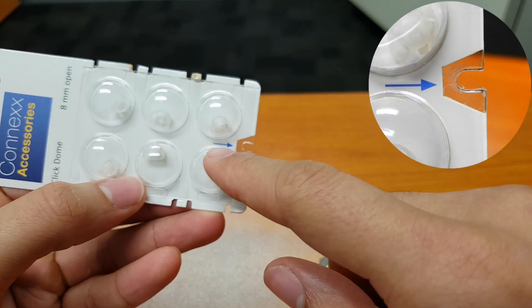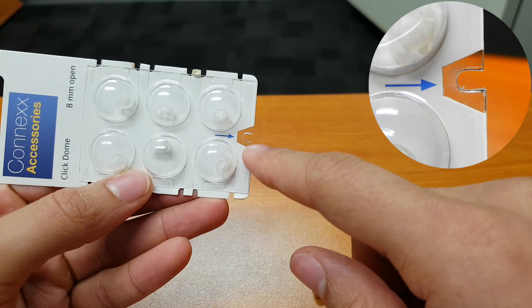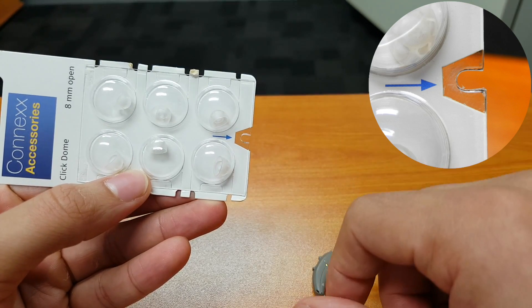If we have a look at the bottom, we've got an arrow pointing to that wedge which will act as a removal tool.